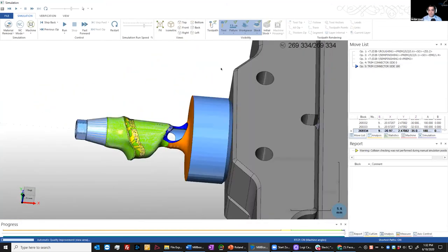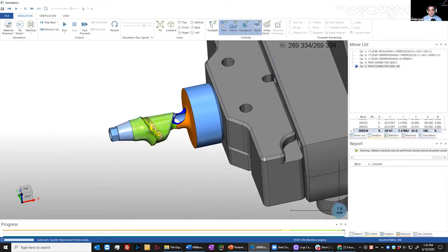That is the overview of our workflow on the CAM side. Lisa, I think we have a little bit of time — we could probably go and show the manual workflow as well. Absolutely, I think that would be great, especially for our Dental Wings users.